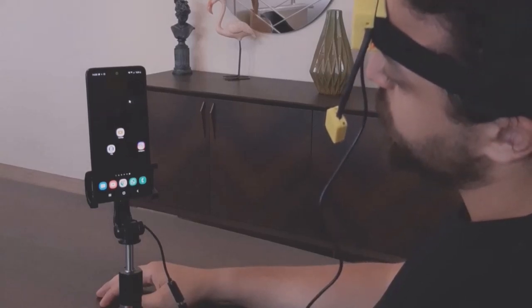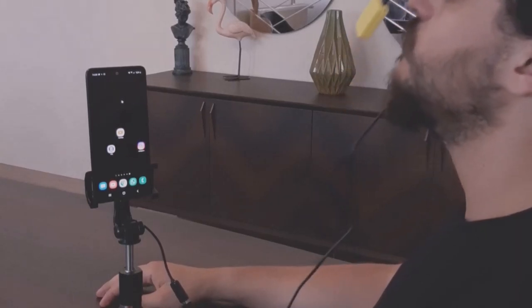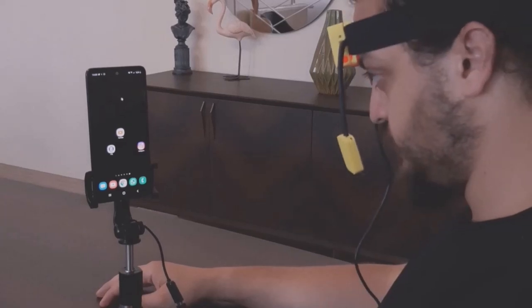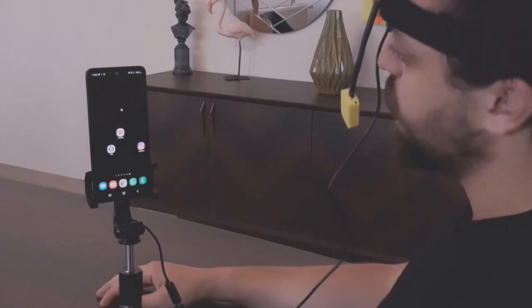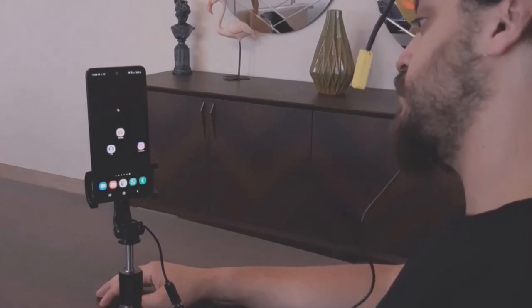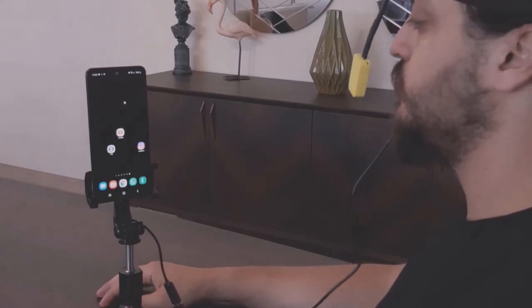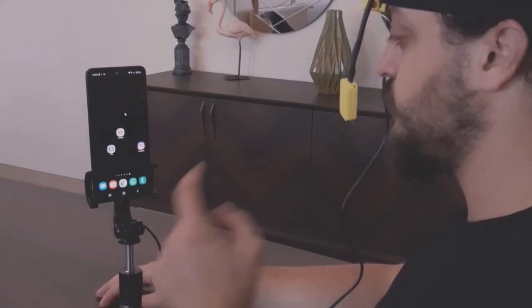When the user tilts his head to the left, the cursor moves left. When the user tilts his head to the right, the cursor moves to the right. When the user tilts his head forward, the cursor moves down. When the user raises their head up, the cursor also moves up.